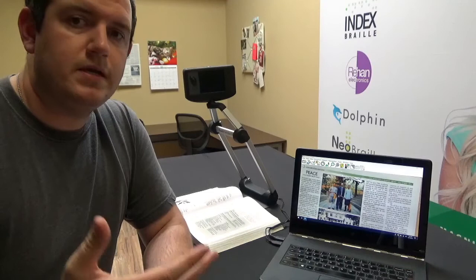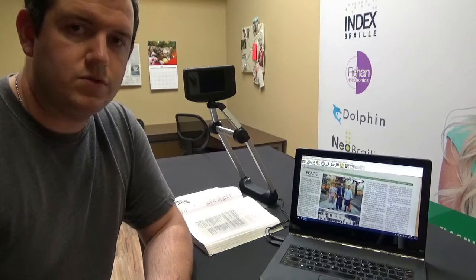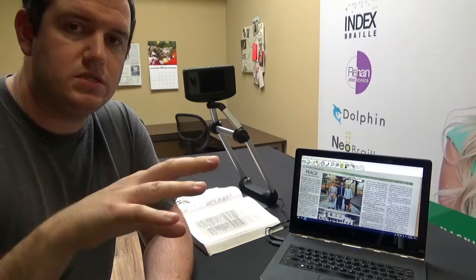There are a few different ways you want to do it as well as a few tricks that you can do to make scanning much more easy and much more efficient. I'll show you the different ways you can scan and a few tips and tricks as well.